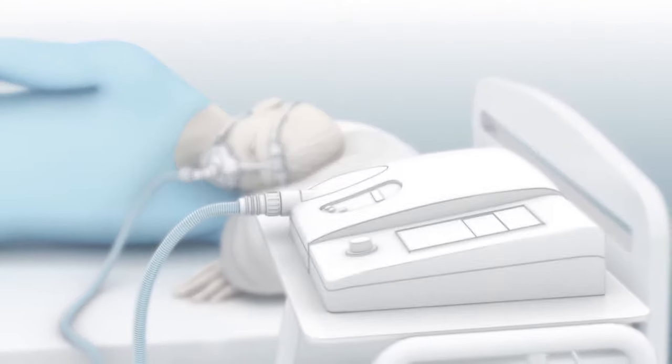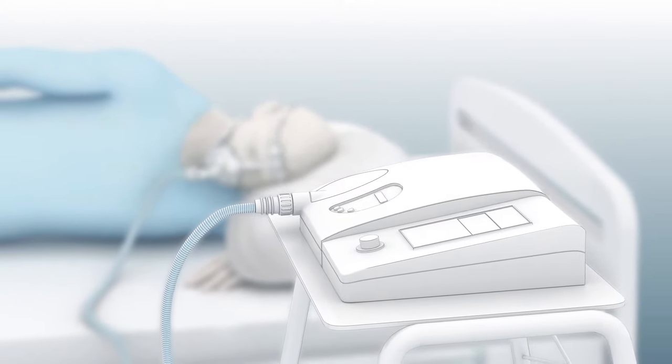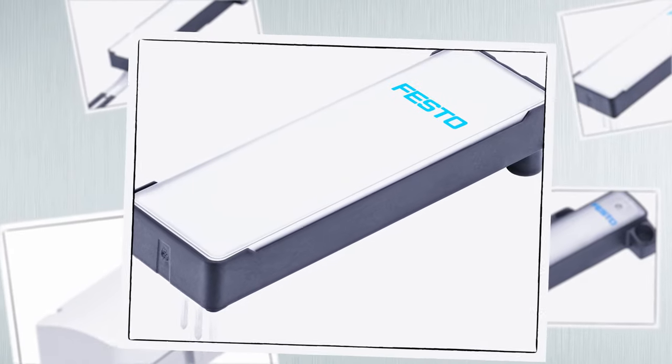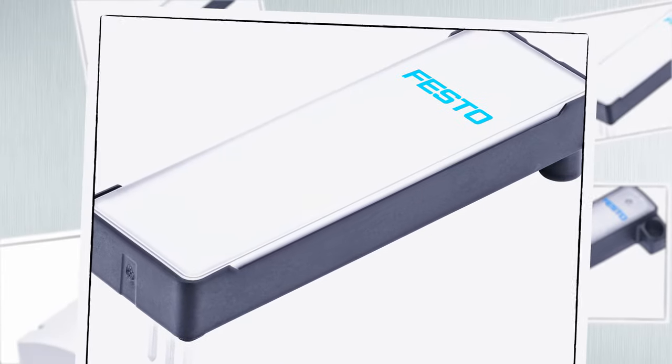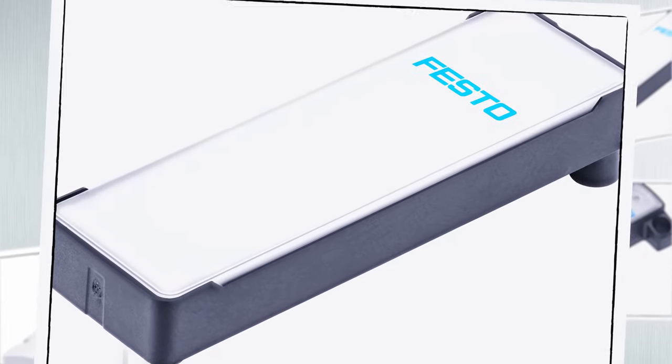Whether flow or pressure control is required, Festo already offers numerous proportional valves with piezo technology for a large variety of medical applications.